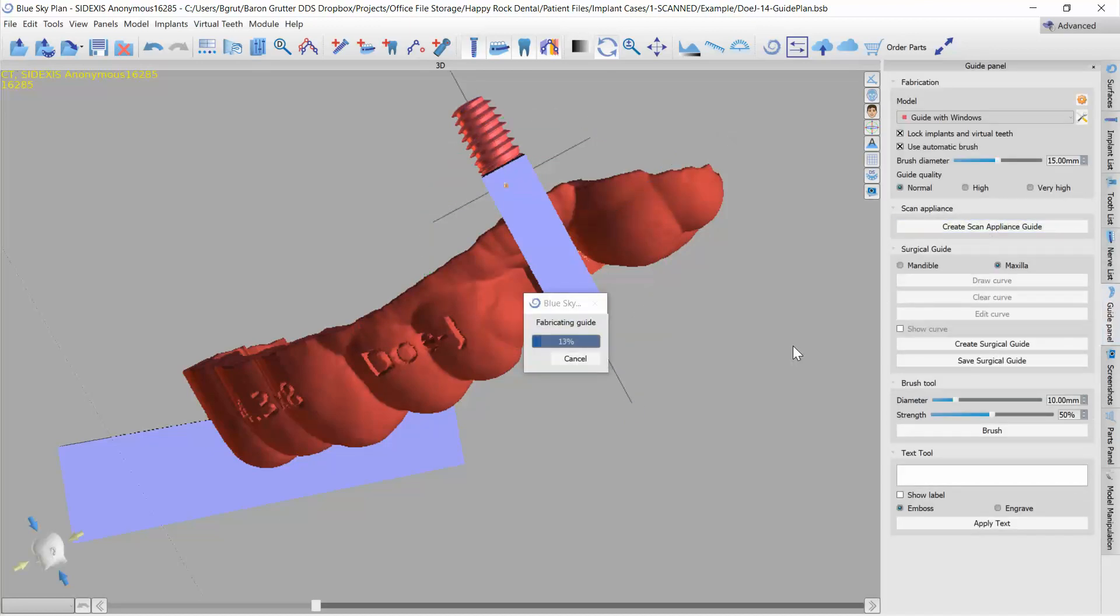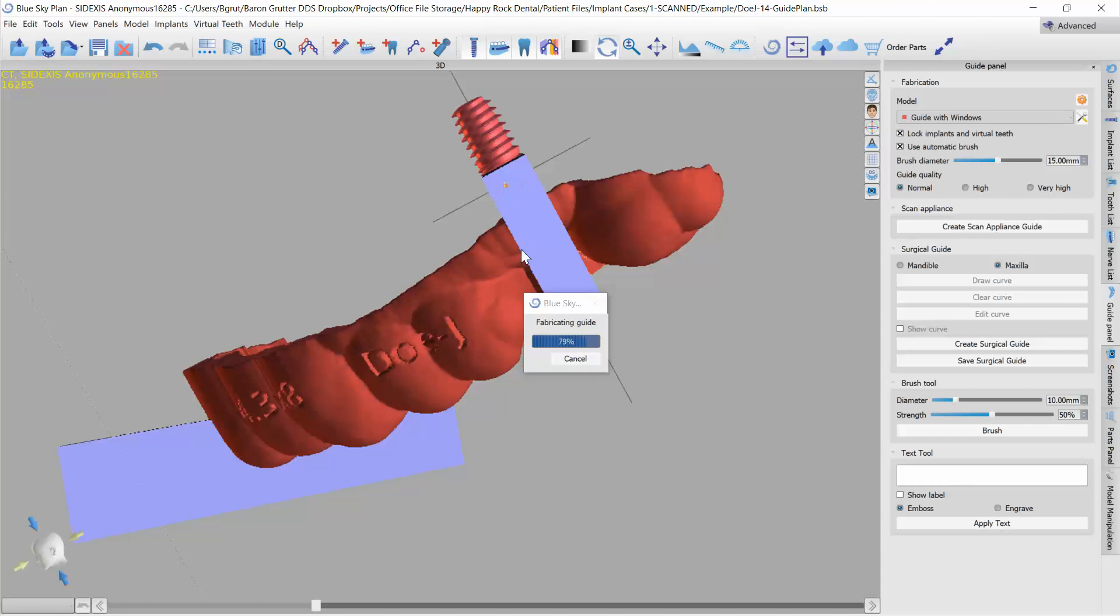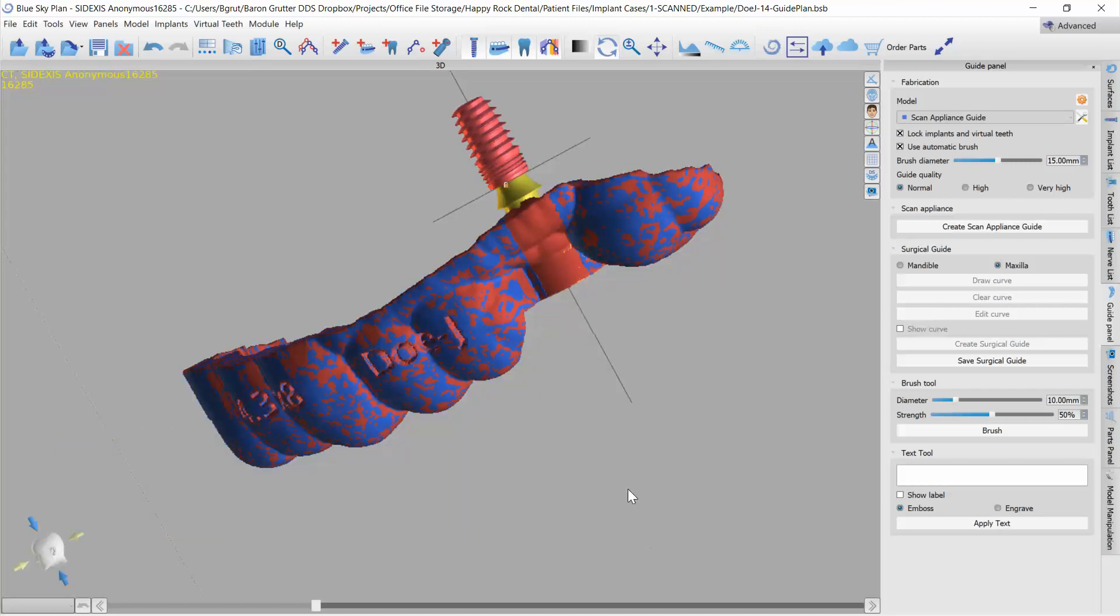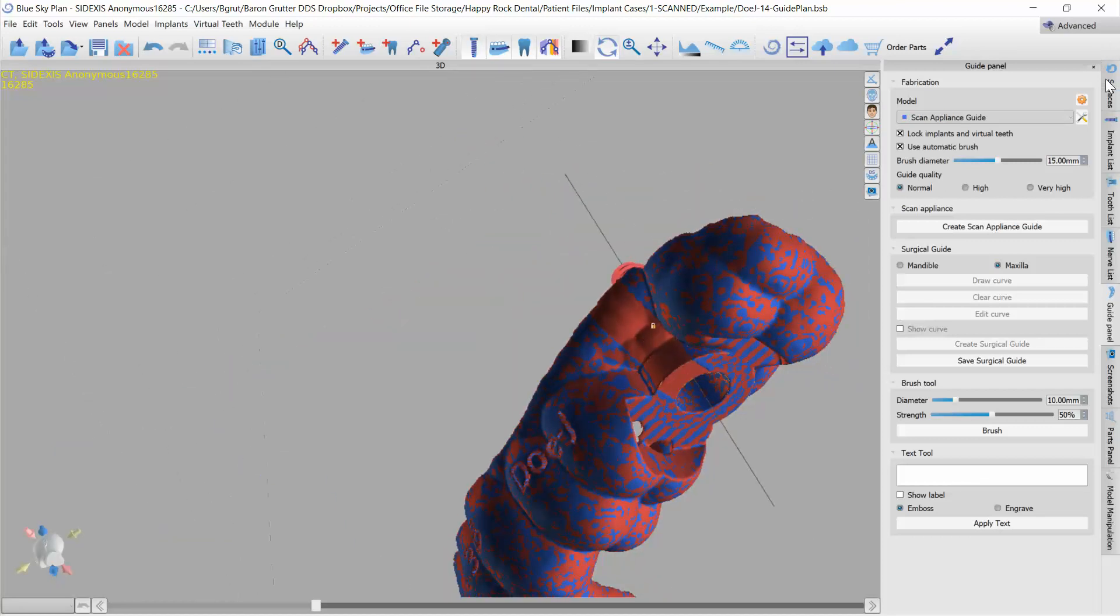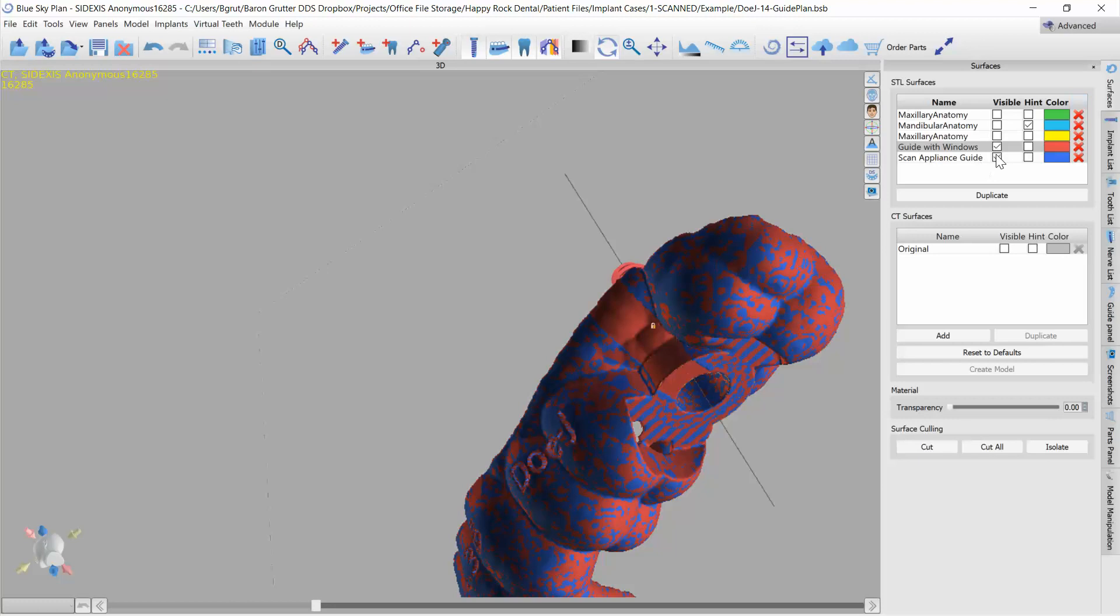So again, I like this because it allows me to preserve those labels I've already added. If this window was hidden, it wouldn't matter because it's really just duplicating this same STL with adding a hole here or adding an implant. I could hide the implant and the hole would still be there because the hole was there to begin with.